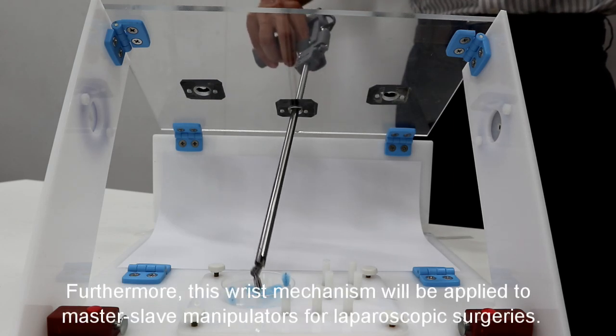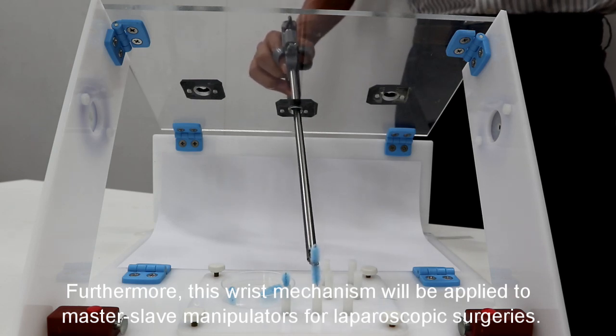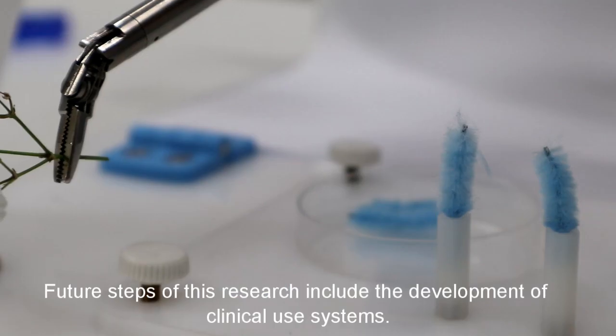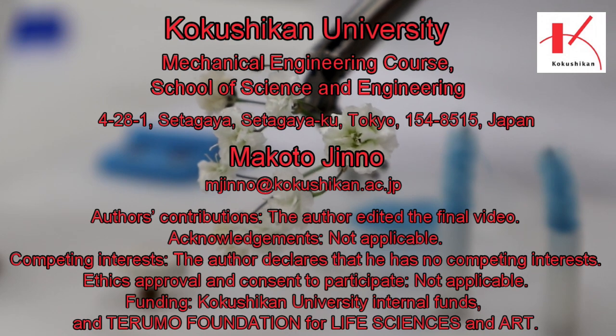Furthermore, this wrist mechanism will be applied to master-slave manipulators for laparoscopic surgeries. Future steps of this research include the development of clinical use systems.